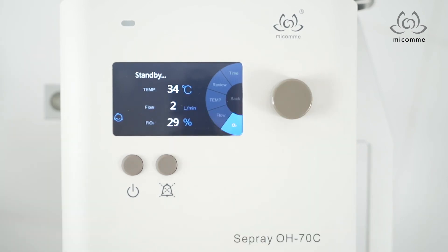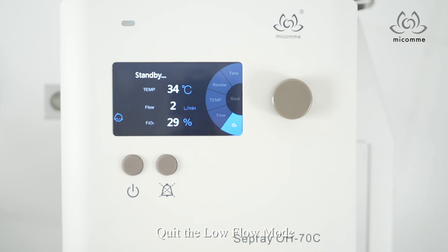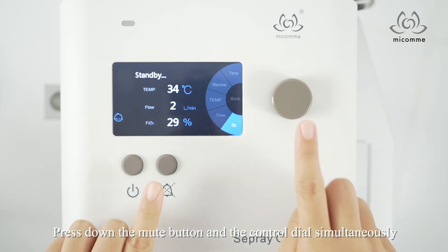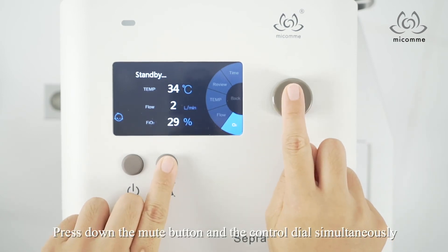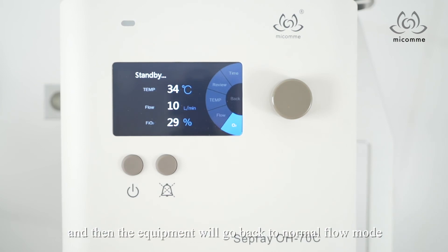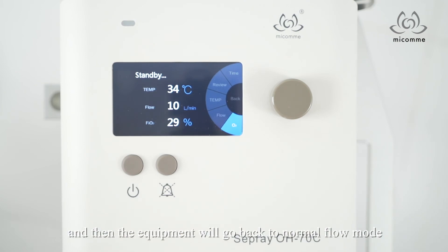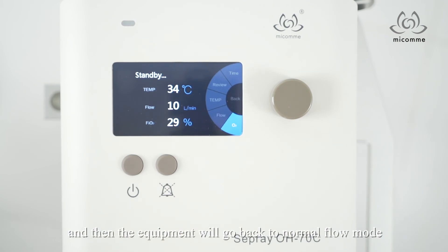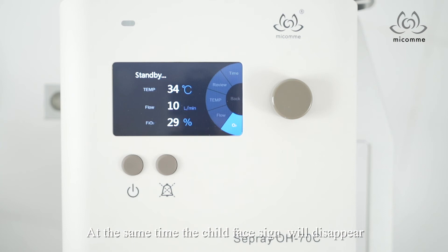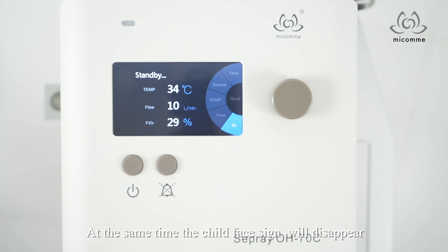To quit the low flow mode, press down the mute button and the knob simultaneously, and then the equipment will go back to normal flow mode. At the same time, the child face sign will disappear.